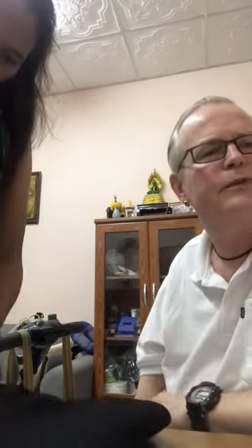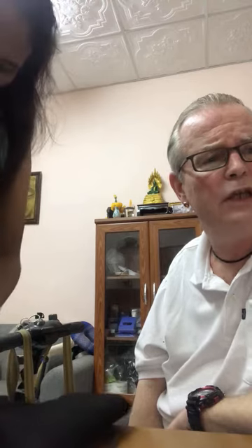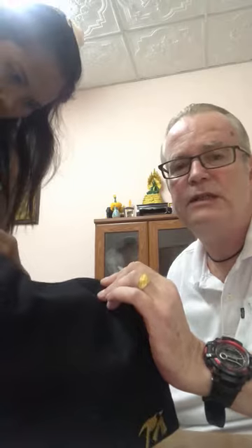One review says: 'Totally useless. A catheter bag could not be used as advertised with any of the two-litre bags available.' This is a 2,000 milliliter bag and I've had to use different shaped 2,000 milliliter bags. All I do is fold it a little bit to put it in the bag. The whole idea is to actually disguise the catheter bag.